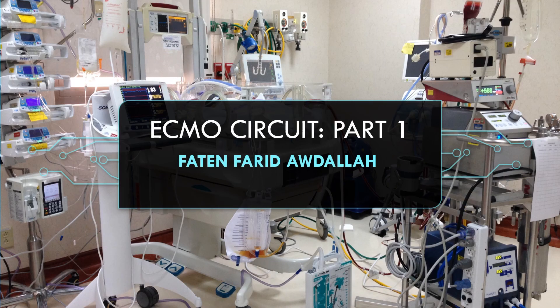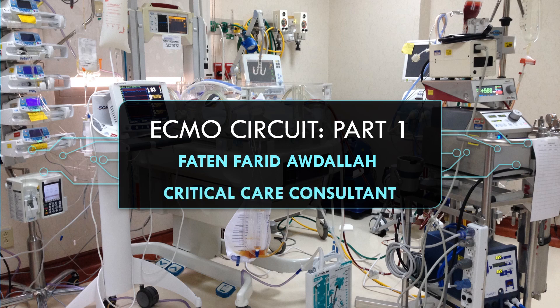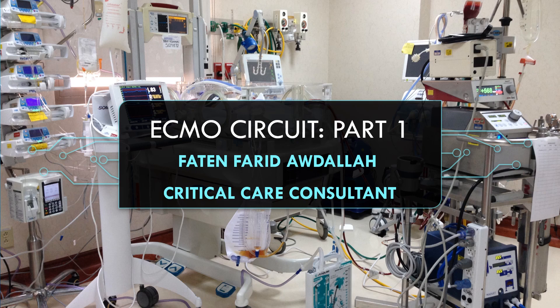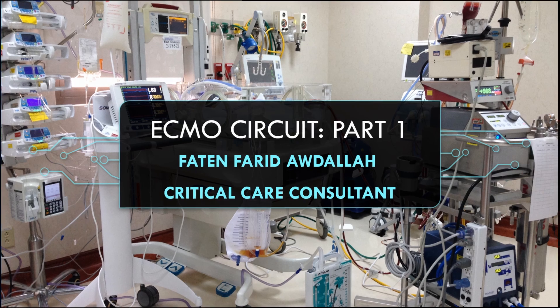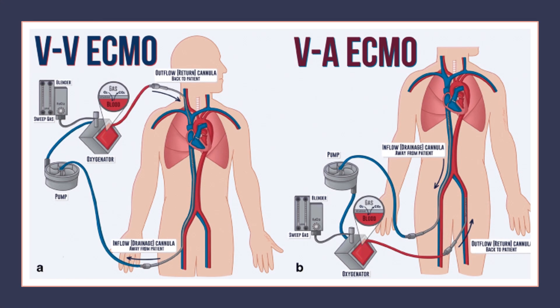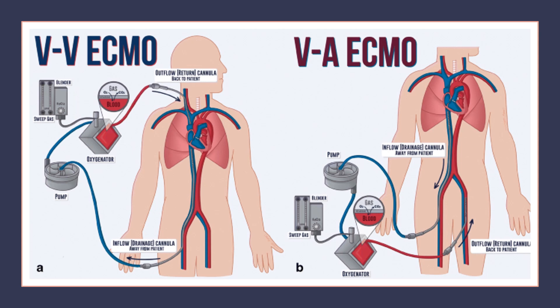Assalamu alaikum. In the next lectures I will start explaining ECMO from the basics till ECMO troubleshooting. This is the first lecture concerning the ECMO circuit. Whatever the type of ECMO — veno-arterial or veno-venous — the ECMO circuit is considered a closed circuit.